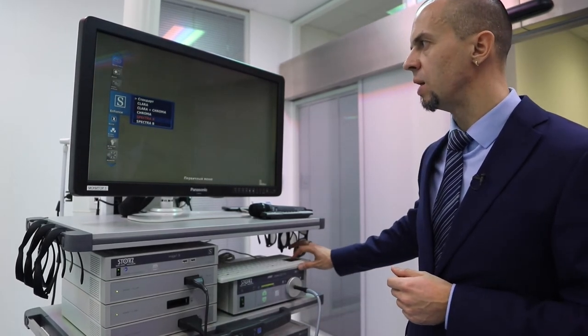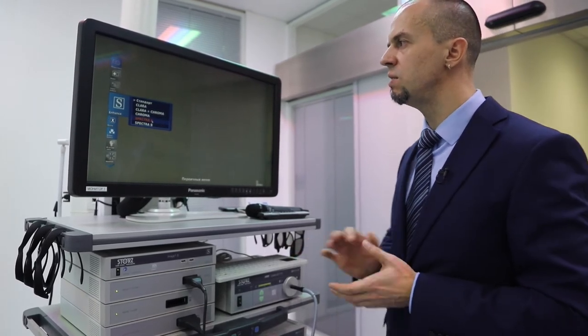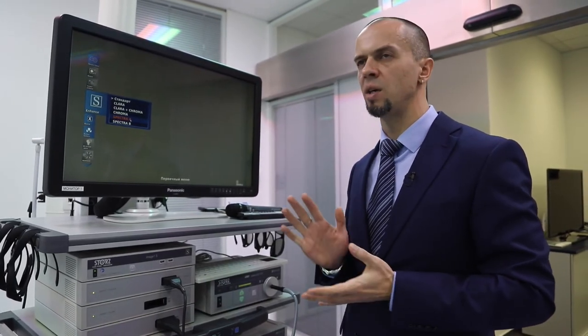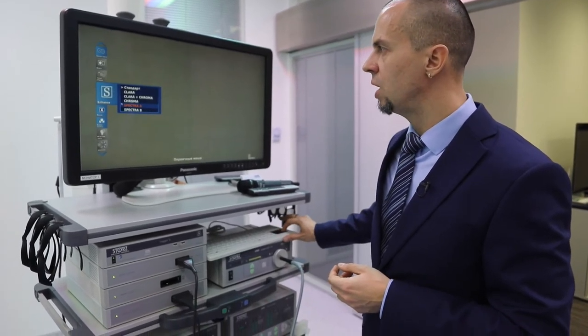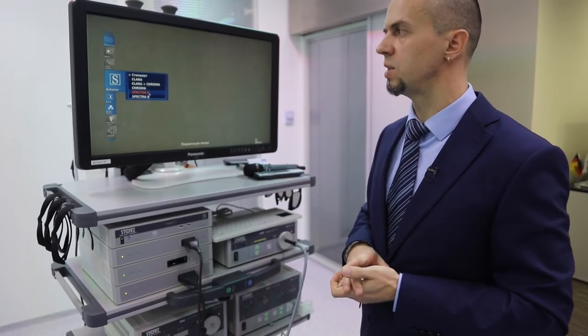По поводу режима Spectra A: этот режим очень нужен, я бы сказал обязателен, если вы систему используете с ICG. При использовании ICG-головки с источником света XENON и препарата индоцианин зелёный флюоресцентное свечение, которое мы видим, достаточно тусклое. Режим Spectra A позволяет это тусклое свечение усилить в несколько раз. Поэтому не забывайте напомнить хирургу, что использование Spectra A для ICG очень рекомендовано.